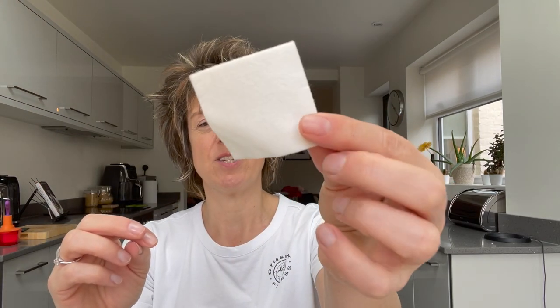These are great as a bit of gauze. Let me open this one up so you can see — these will be good if you have maybe a bleed in the mouth or a cut somewhere. You could just fold it up and bite on it to stop a tooth from bleeding, or you could put it on your arm and then get one of these bandages and wrap it around to secure it in place.